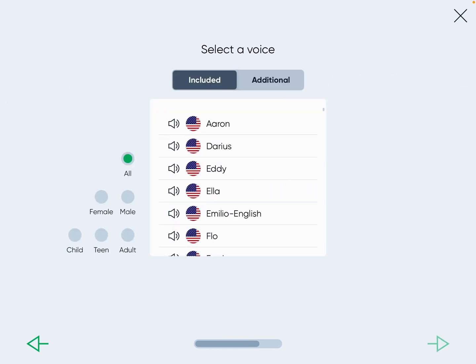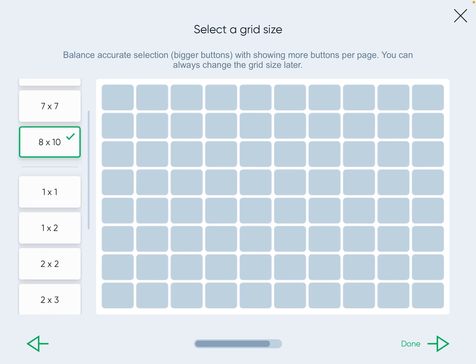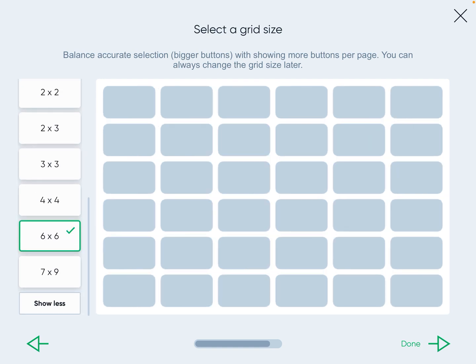You'll see voices. I'm going to pick a random voice right now, because I'll show you later how to choose a voice for your English side and a voice for your Spanish-speaking side so they have the correct pronunciation. For now I'll choose Emilio and press next. What's really nice is you also have an option of grid size — I'll try the 6x6.